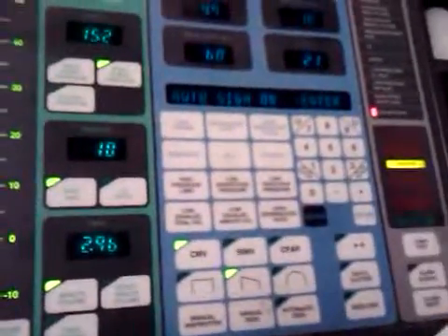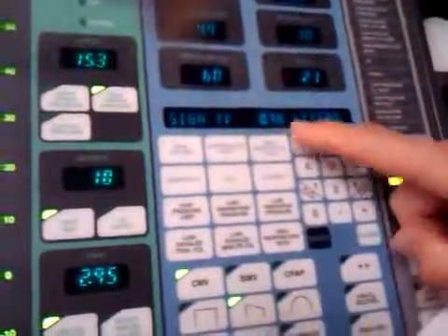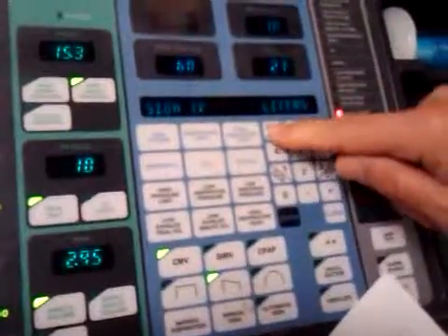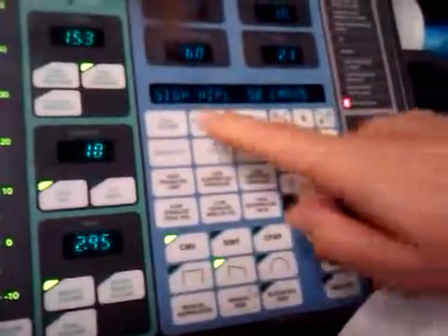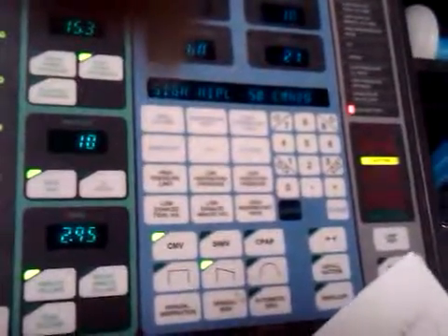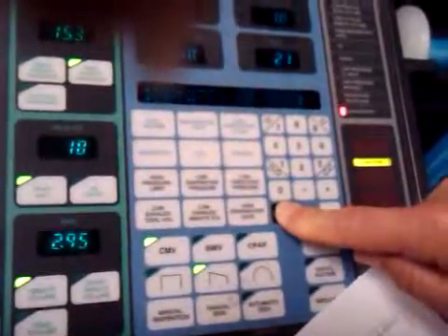Okay, look, if I do it off your instructions, under the ventilator settings section, press automatic sigh. That brings me to the sigh tidal volume. And what I'm going to put in there is 1.5 times my set tidal volume, which you guys figured out to be 0.78. Enter. So go to the next one. At the sigh high pressure limit, I want to set 10 above the sigh P1. But since I don't have a sigh P1, I'm going to set it at 50 until I can get one, just to protect the patient.